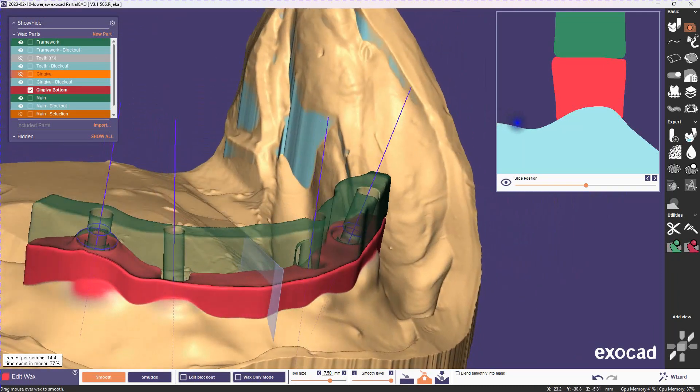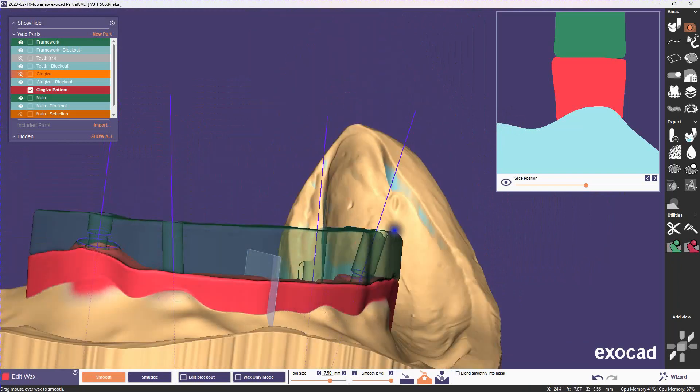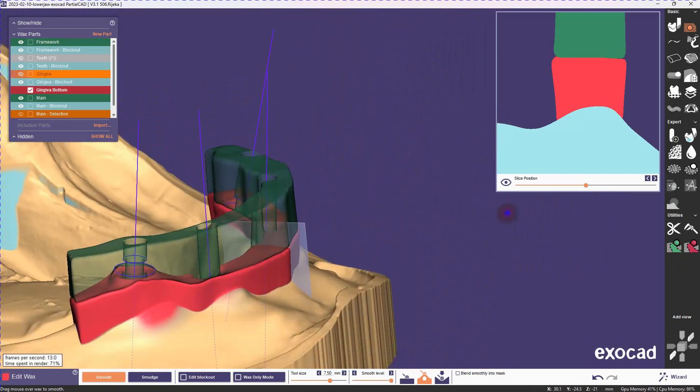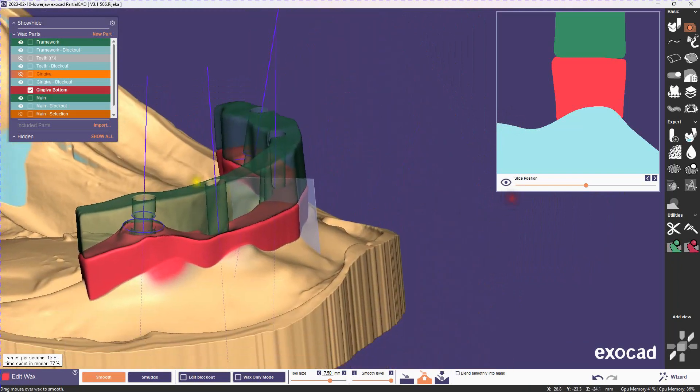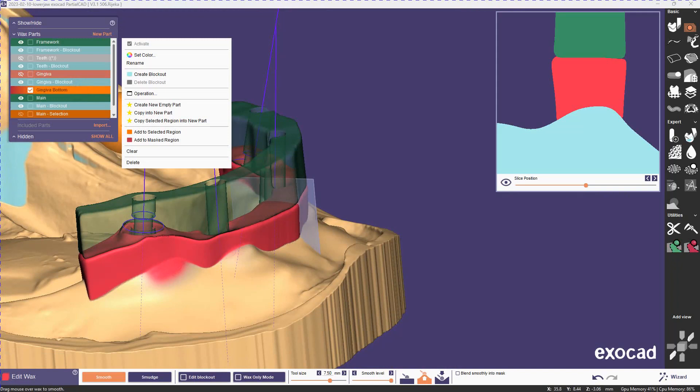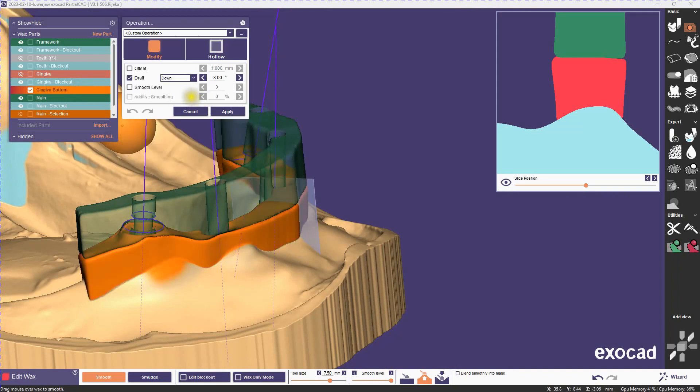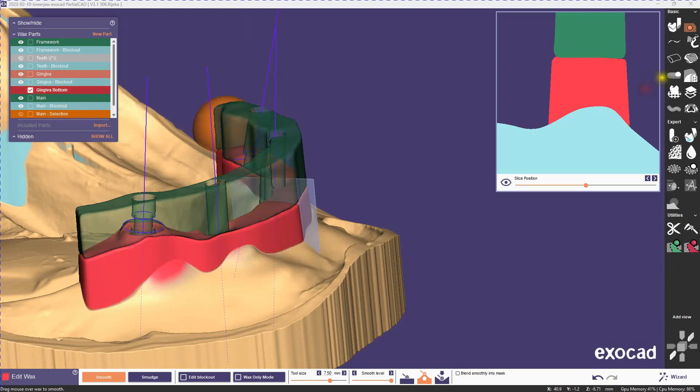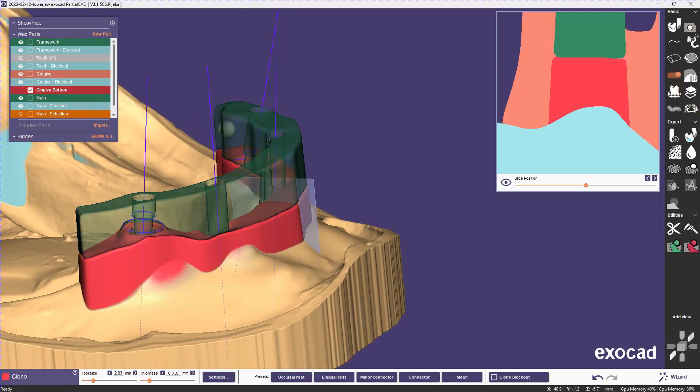So now we have a good edge to work off of, and now we're going to apply a positive draft to get the bulk of the bottom gingiva. Now at this point you can already call it a day. You have your bottom gingiva that should be functional. But we're going to do a couple of other things to make it nicer, and just to show you some different options that you have.